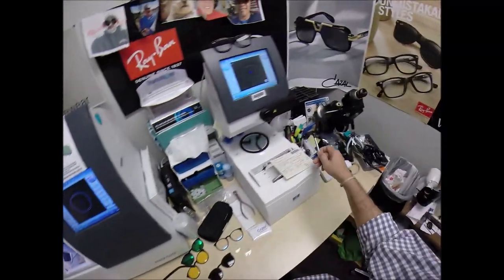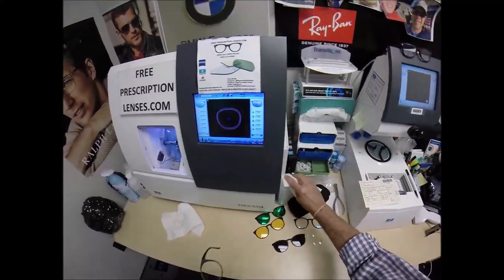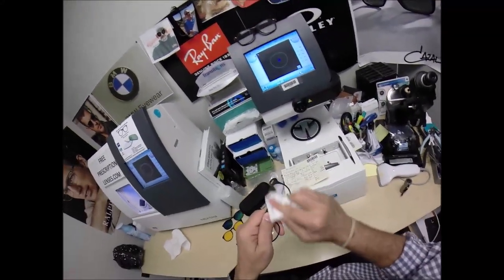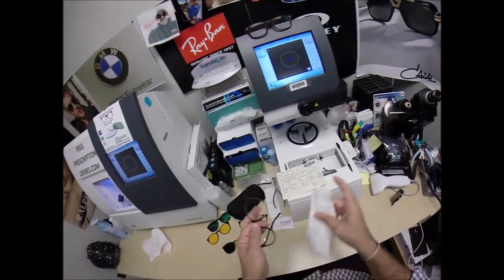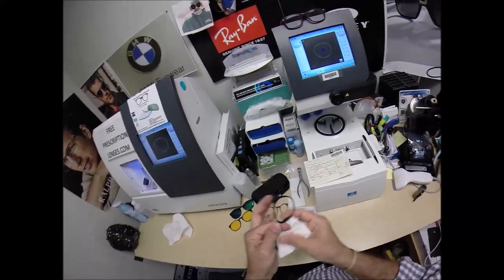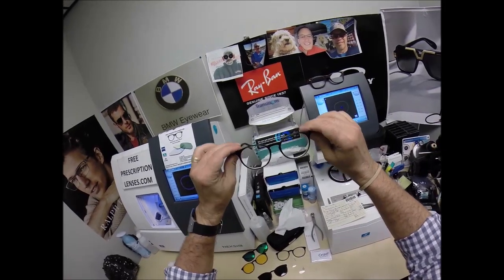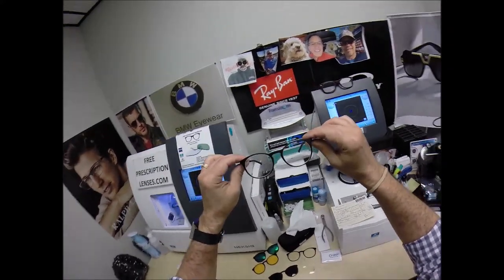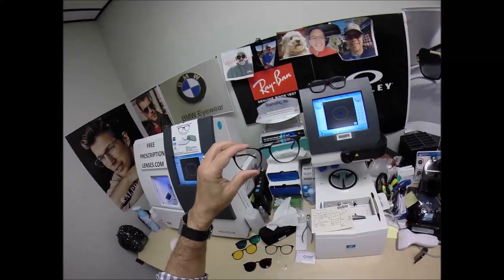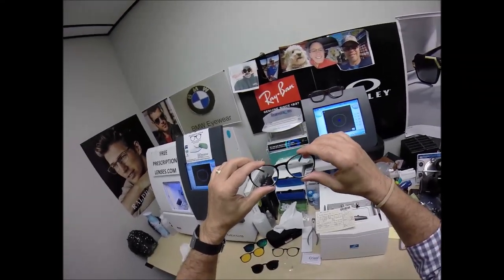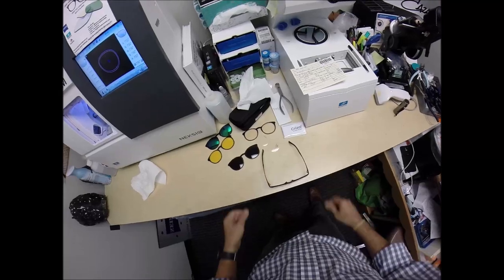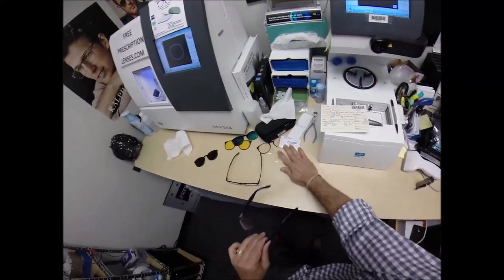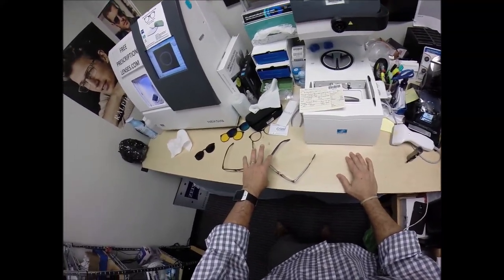Now, all of what I'm doing is known as final inspection. I make sure the lenses are correct. The prescription is cut correct. The PD, the optical center. The last thing I do is get it in standard alignment, also known as a three-point stance. By the way, this is the point in every video. As I clean your lenses, I mentioned there's free shipping anywhere in the U.S. and its territories. But when you get these in the mail, Bob, since 1981, there is a small chance these could fit too loose or too tight. However, there's an 80% chance that one side is going to sit higher than the other. That's because 80% of people have one ear that is higher than the other. And because of that statistic, 99% of all optical shops will do free adjustments if you ask them.